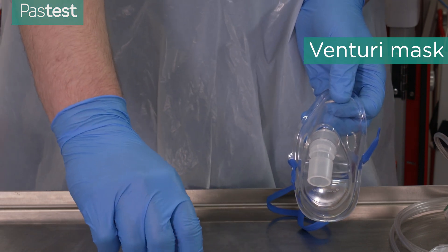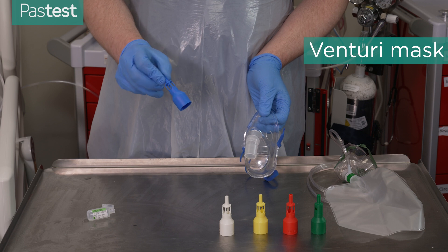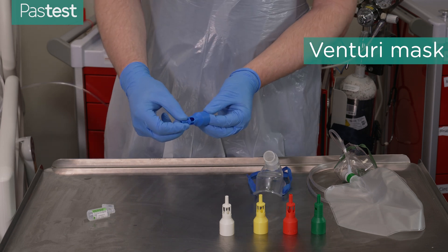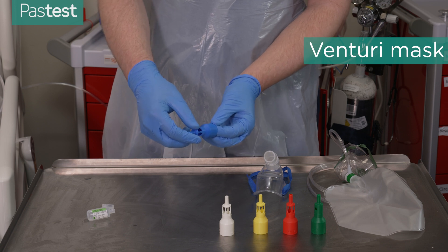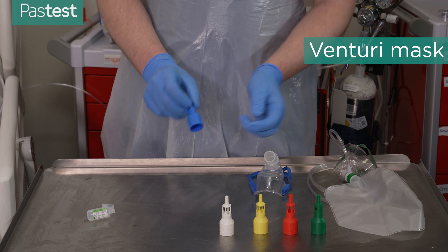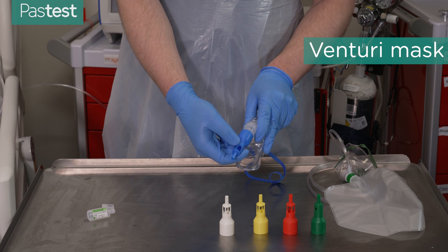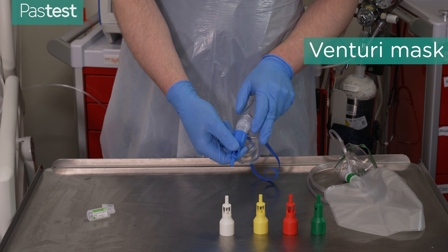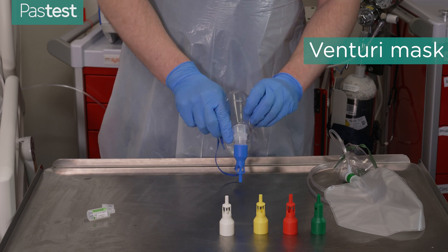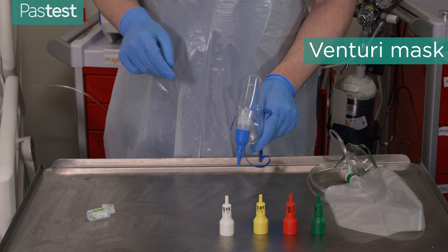Each of these attachments has both the flow rate and the oxygen concentration written on them. This one says 24% oxygen concentration at 2 litres per minute — not that different to a nasal cannula, but a lot more precise with less variation. It can be much better at maintaining saturations at your target — so 88 to 92% in someone who's retaining CO2.